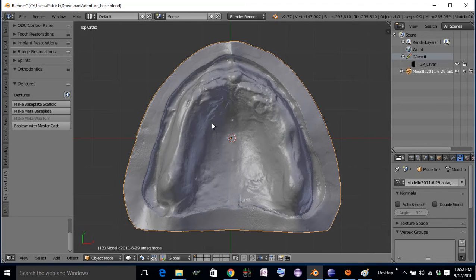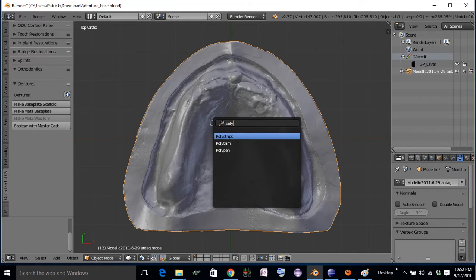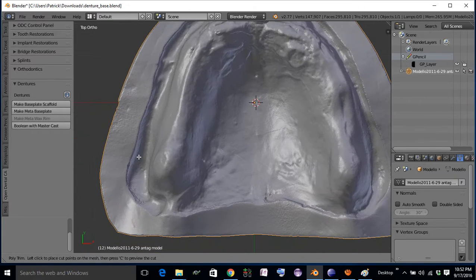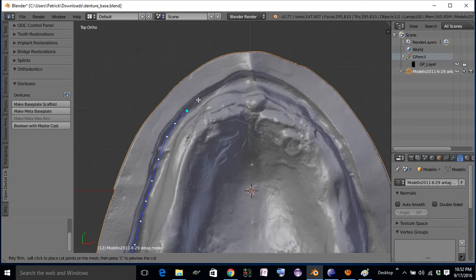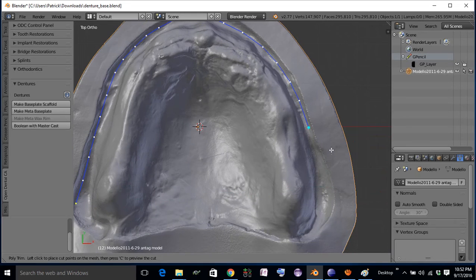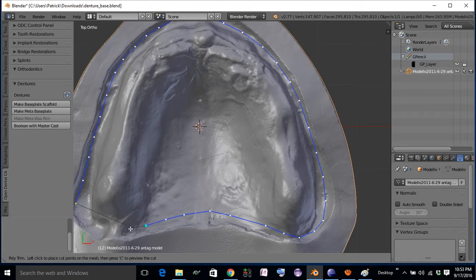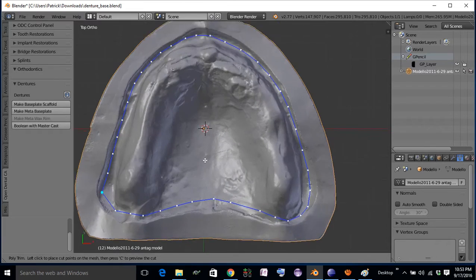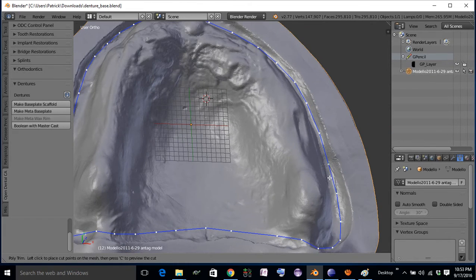Our first step, we'll be using our trimming function to trim out the intaglio surface of the denture. For this method, to give you the best results, you want to stay about the same width as you plan on making the thickness of your base plate away from where you want the denture base to end, because the offsetting method is going to extend the periphery a little bit further. For example, I'm staying about 2.5 millimeters from the land.